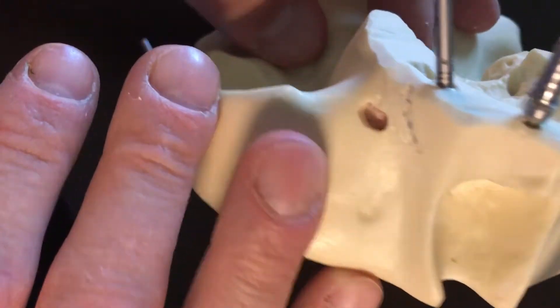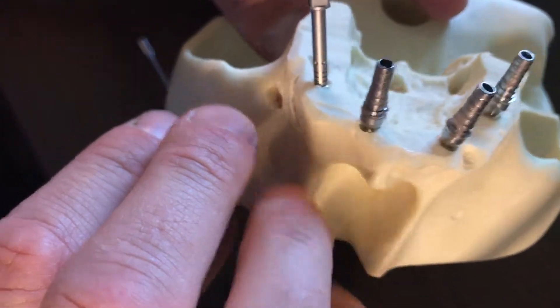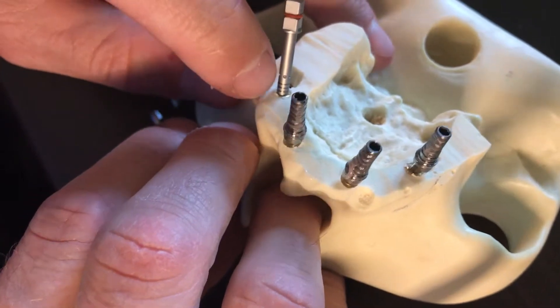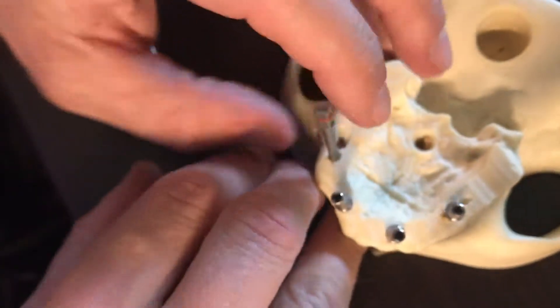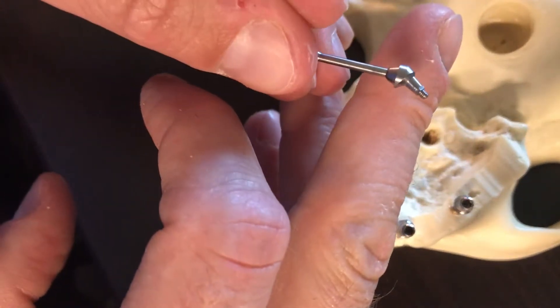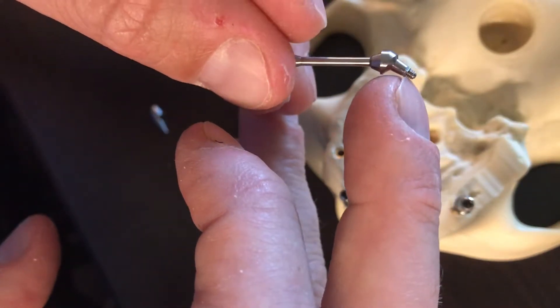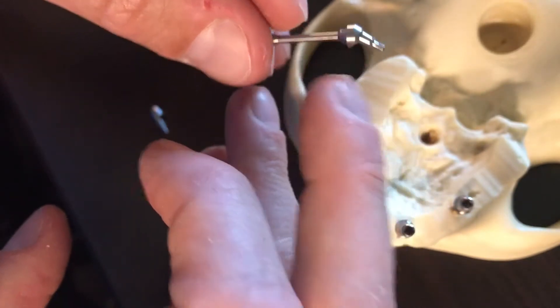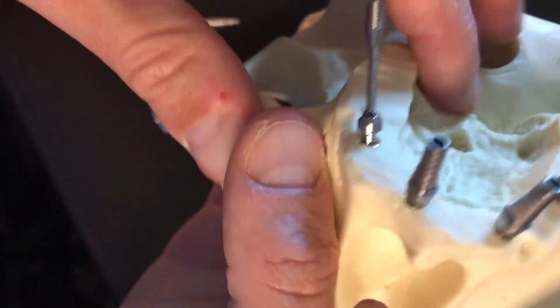This follows the vector of the implant being placed on an angle. To be a great rep — not just a good rep — when you line up the dots and you line up one of the dots on your driver to the mesial, when we go to actually deliver a hexed abutment, you can see the hex on the bottom. There are six positions on this — hence a hex — and it locks into the implant in those different positions.